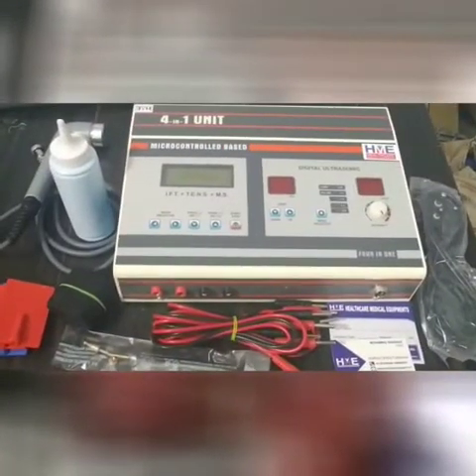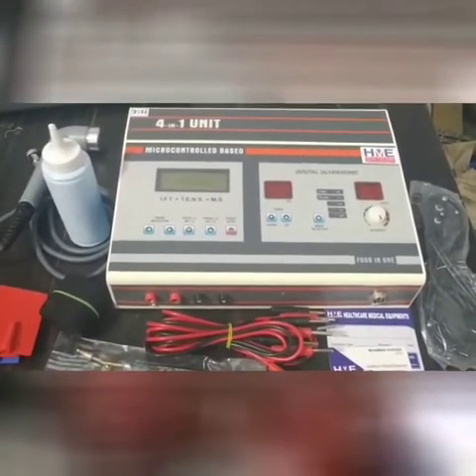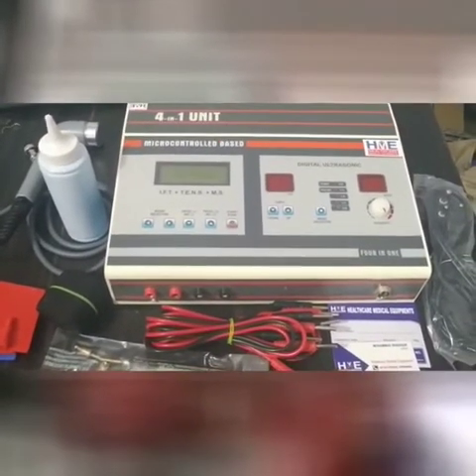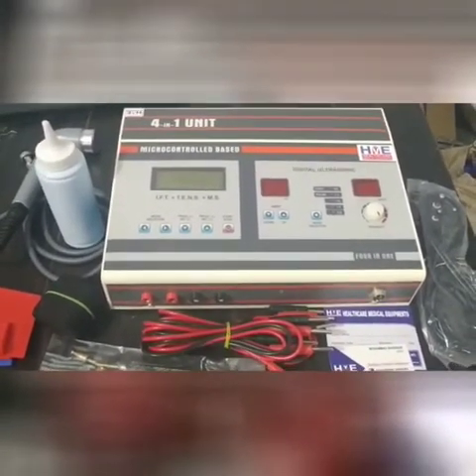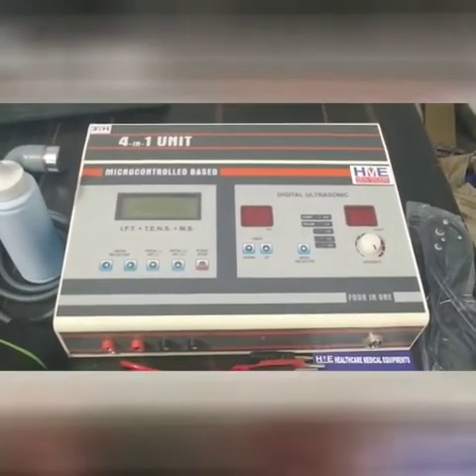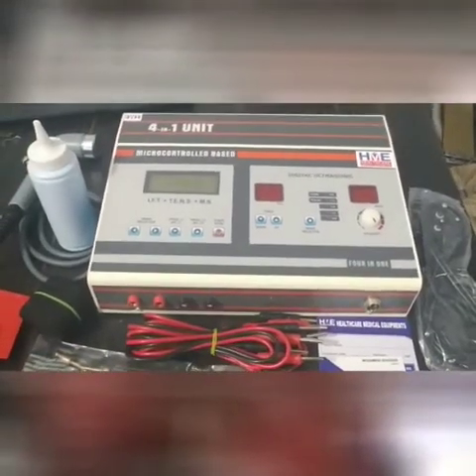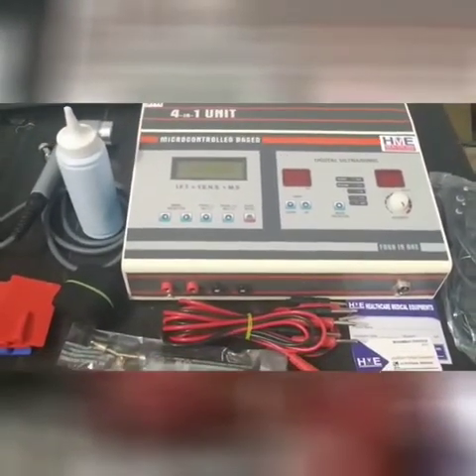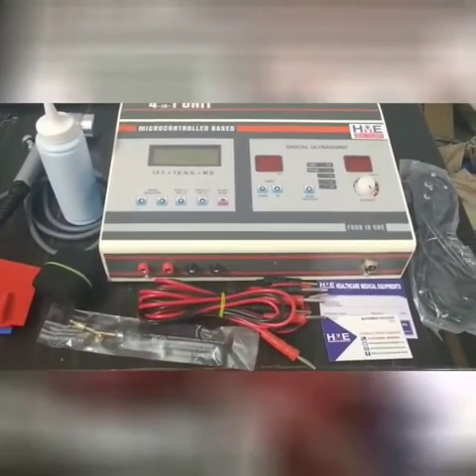Hello everyone, welcome to Healthcare Medical Equipments. Today I am back with my new video which is about a microcontroller based combination therapy unit 4-in-1, which includes IFT, TENS, MS and Digital Ultrasonic. I am going to tell you about all the features, product description, accessories and how we can start the machine.